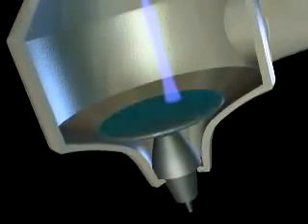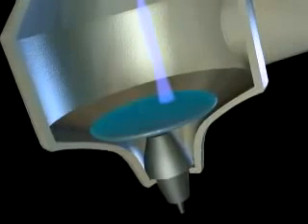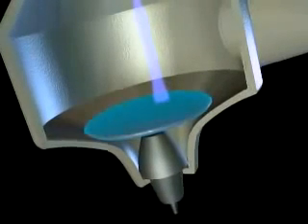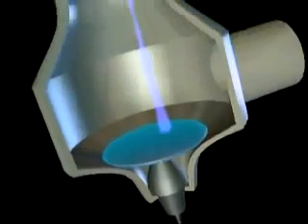The anode, located on the opposite end of the X-ray tube, is a disc made of tungsten, a material that attracts the electrons.